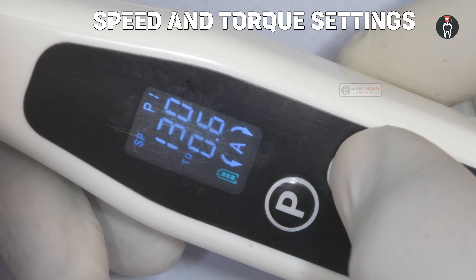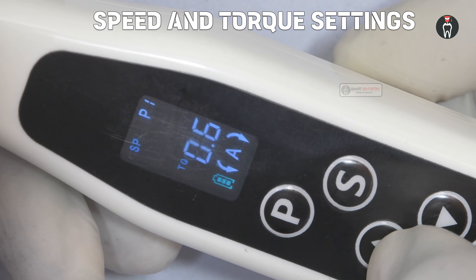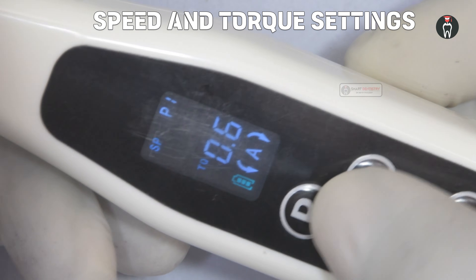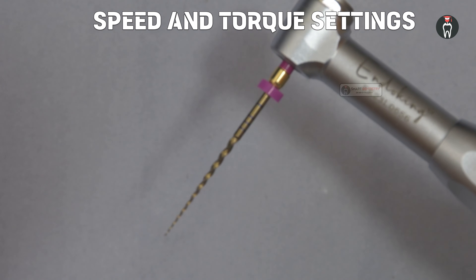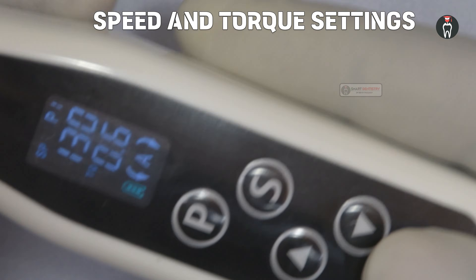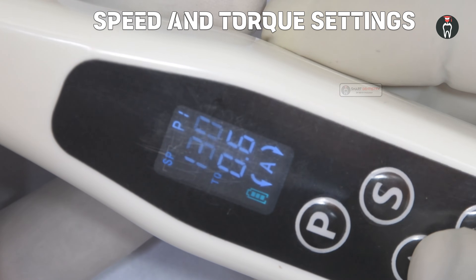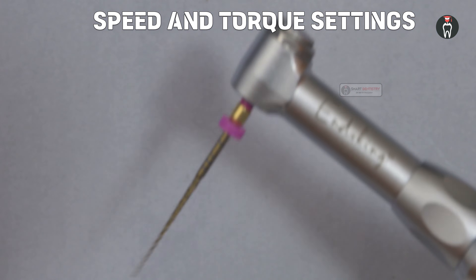Let's see about the speed and torque settings in an endomotor. I am showing this endomotor for demonstration purposes only. The speed setting in a typical endomotor can be in the range of around 130 to 600, but depending upon the endomotor it can be different — maybe in the range of 100 to 2000. Certain file systems need a higher speed recommendation, and there are endomotors which support up to 2000 rotations per minute. At a slower speed the file rotates slowly, and at a higher speed, maybe 600, it rotates fast.